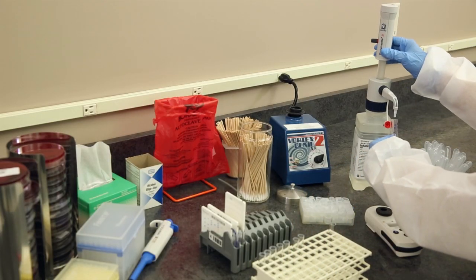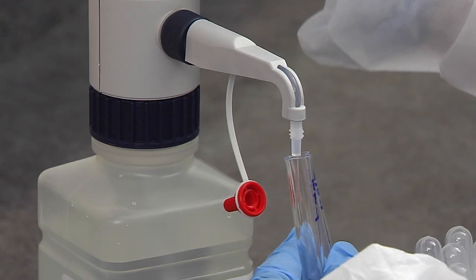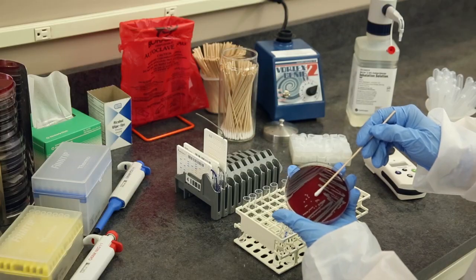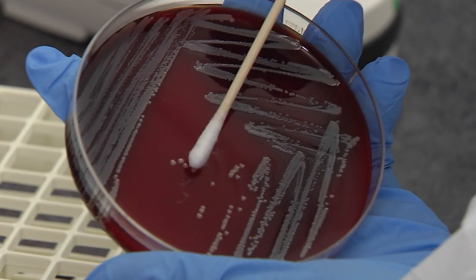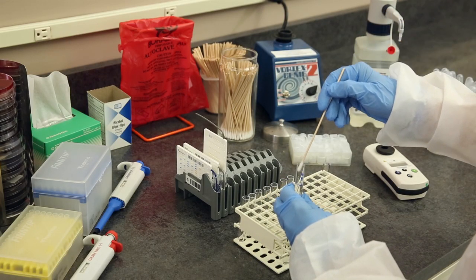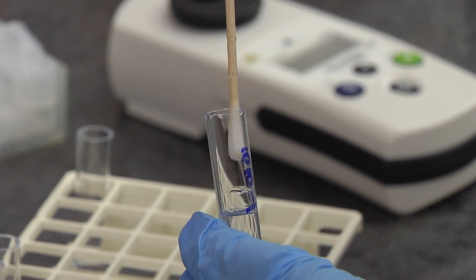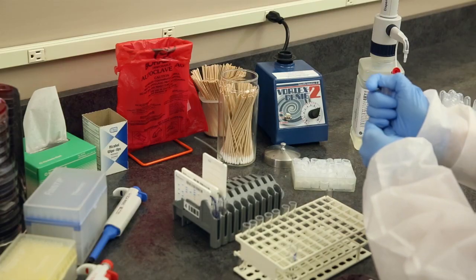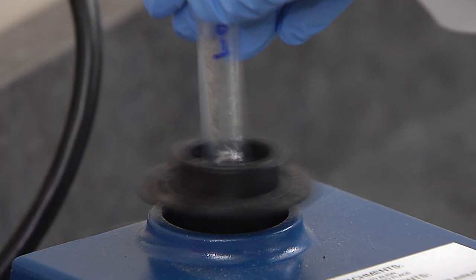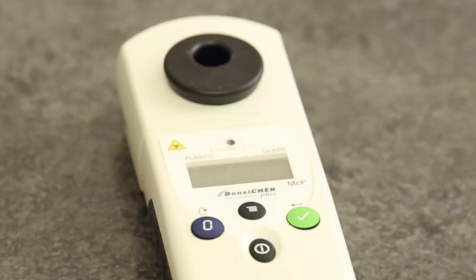Using the dispense set, dispense 3.0 mL of saline into both tubes. Use a sterile stick or swab to transfer morphologically similar colonies to one of the tubes. Be careful to avoid picking up any agar with the stick or swab. Mix well to prepare a homogeneous suspension. If necessary, cap the tube and vortex thoroughly.